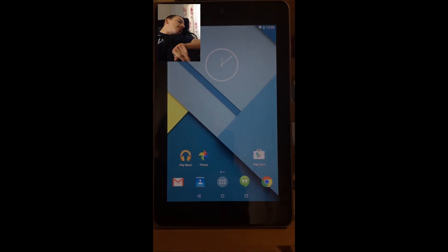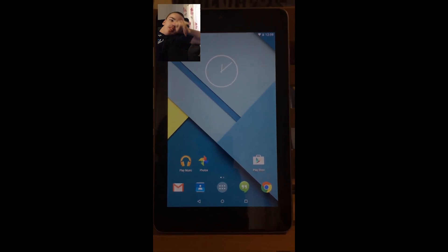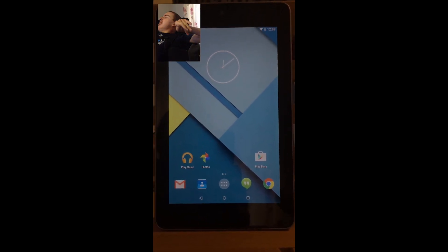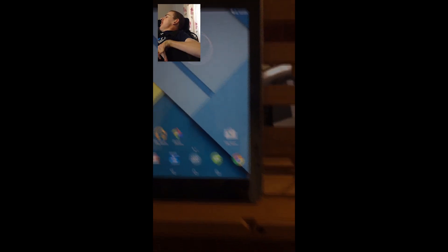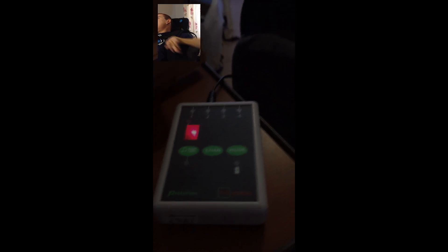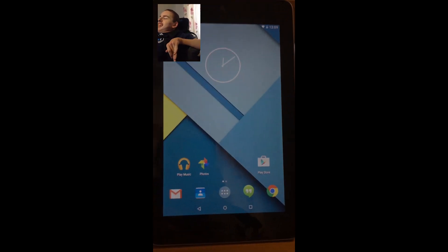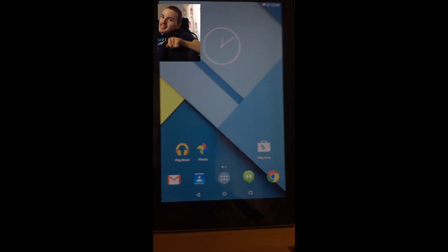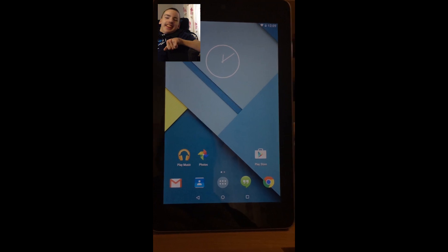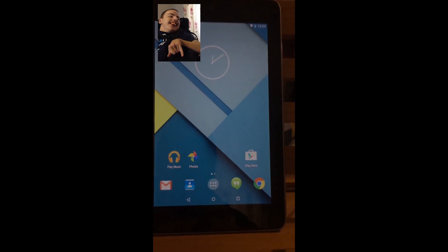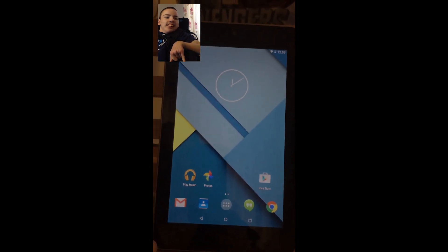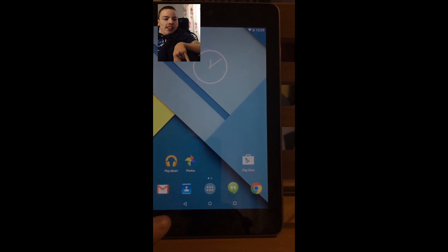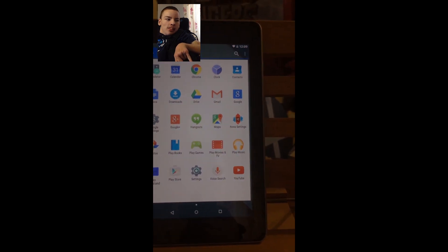So here we have Android Lollipop installed on Nexus 7 with a Praetorian applicator connected to Colin's head switch. Right, so first thing we have to do is get this applicator connected to the Nexus device.